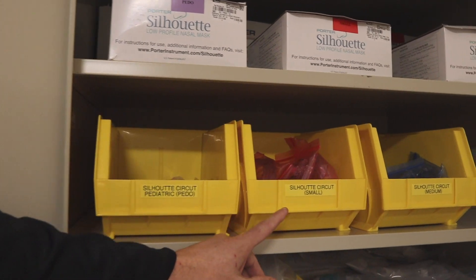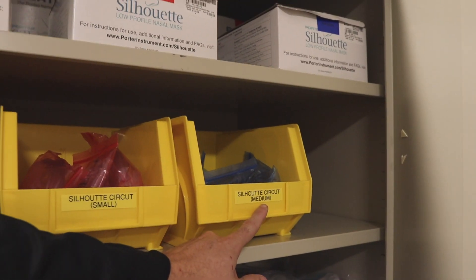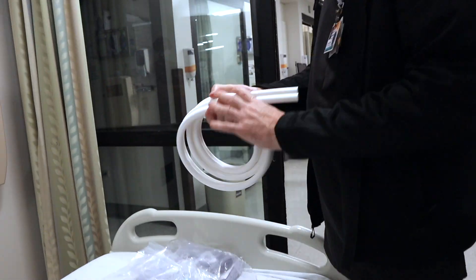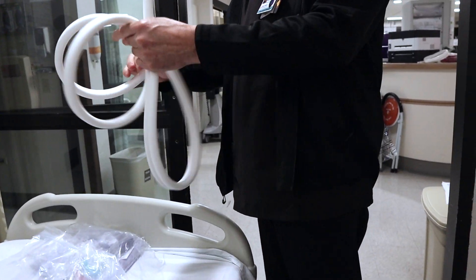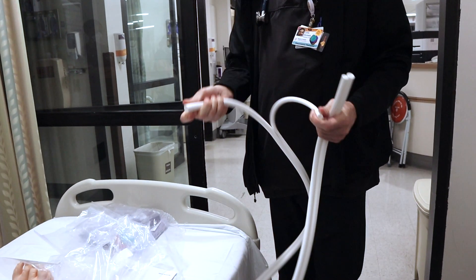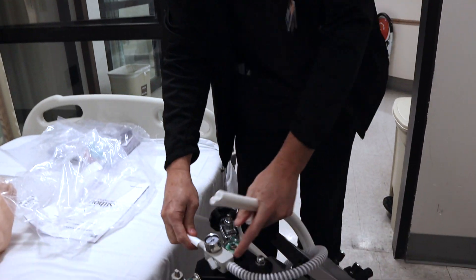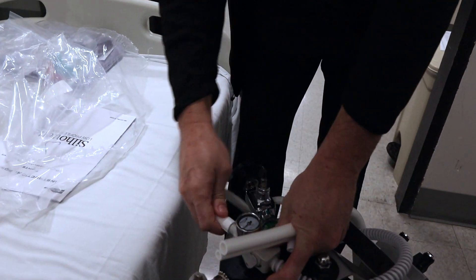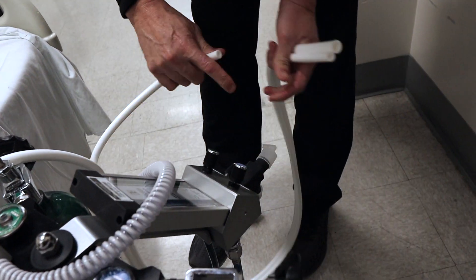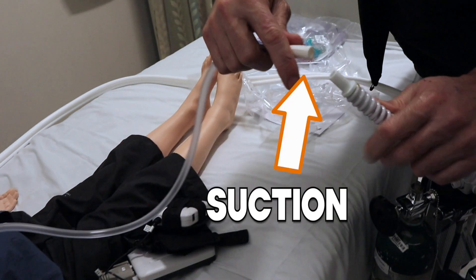Keep in mind the disposable circuit comes with a sizing template — use that to determine appropriate mask size rather than opening all three. For setup: open the circuit and find one end; both ends are the same, each having a larger diameter tube and a smaller diameter tube. Connect the large tubing to the vacuum gauge and the small tube to the 22-millimeter 90-degree elbow, which then connects to the flow meter outlet. The other end of the vacuum gauge should be connected to suction.